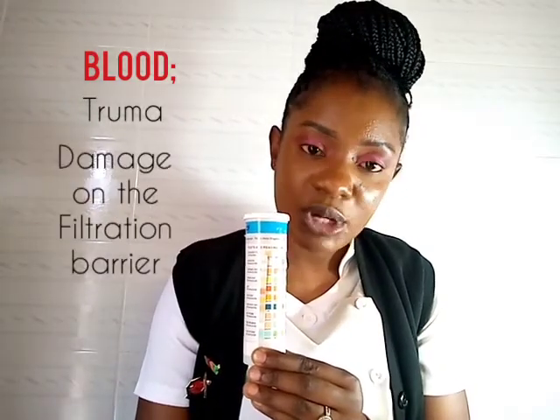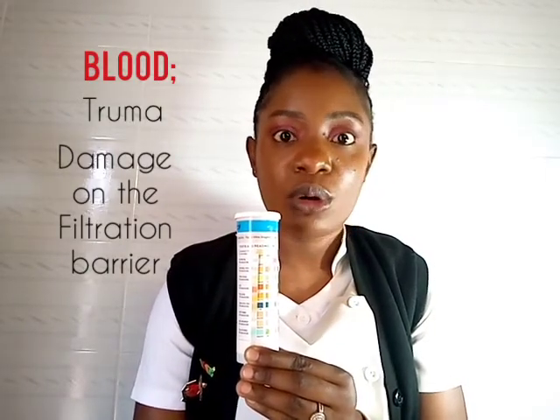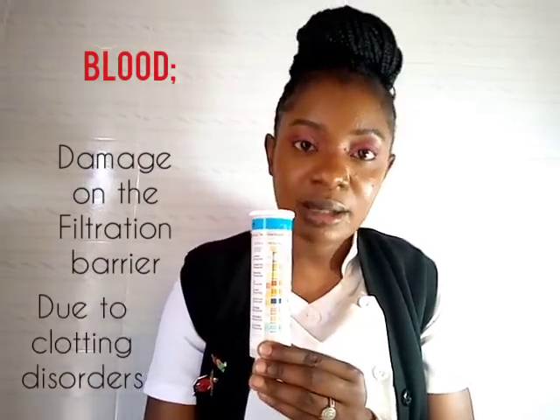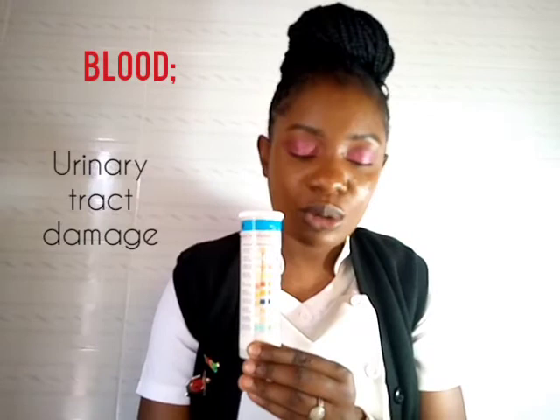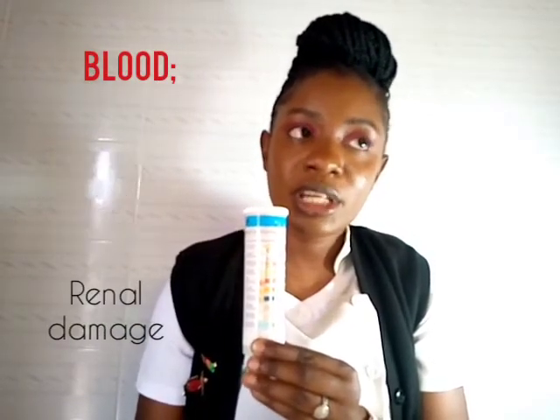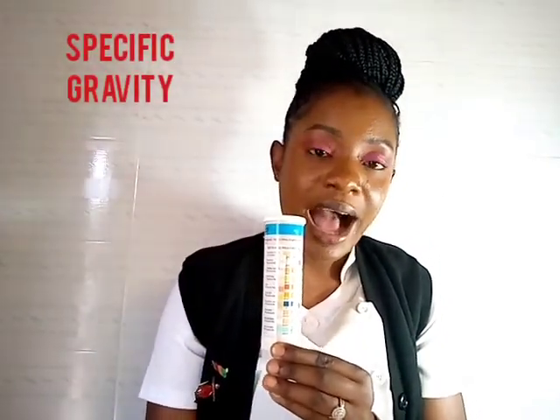We move to blood. Presence of blood in urine can indicate trauma, damage on the filtration barrier, clotting disorders, urinary tract damage, or renal damage. Presence of blood in urine can be due to trauma somewhere in the bladder, the urinary tract, or on the glomerular filtration barrier.